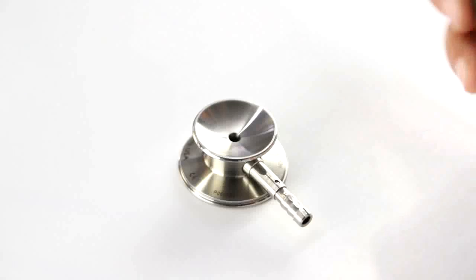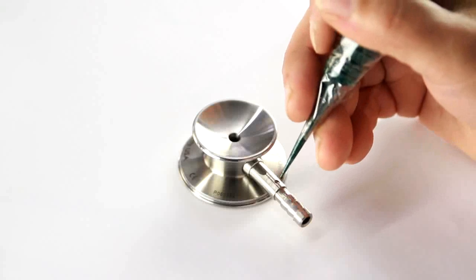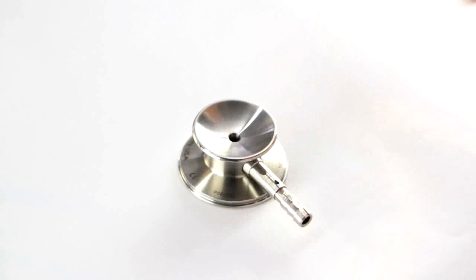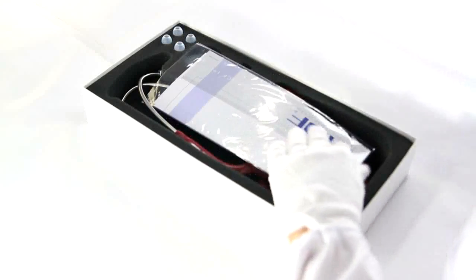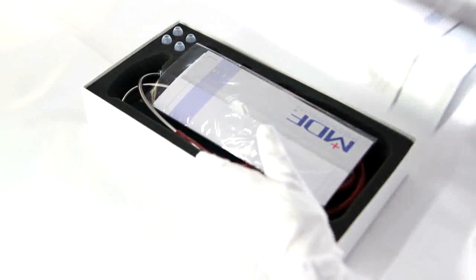And the final product is a thing of absolute beauty. It's a work of art. A jewelry-grade instrument. And because of our almost fanatical attention to detail and quality in our handcrafted process, we can top it all off with a lifetime warranty and free parts for life program.